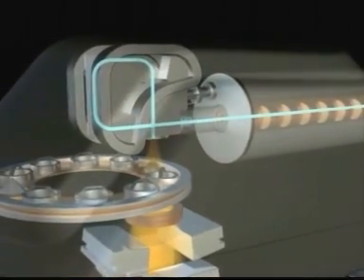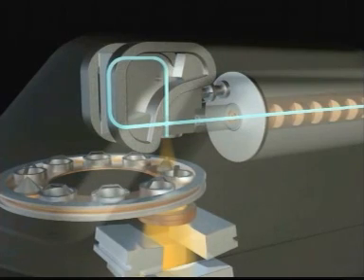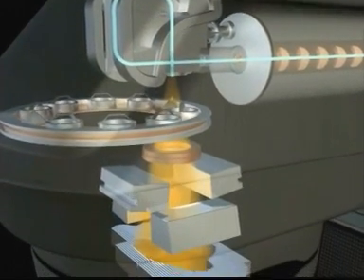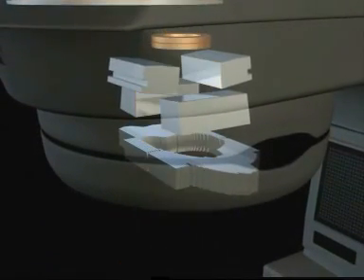The beam can be accurately controlled and shaped to the tumor with a collimation system consisting of two sets of jaws and a dynamically controlled multi-leaf collimator.